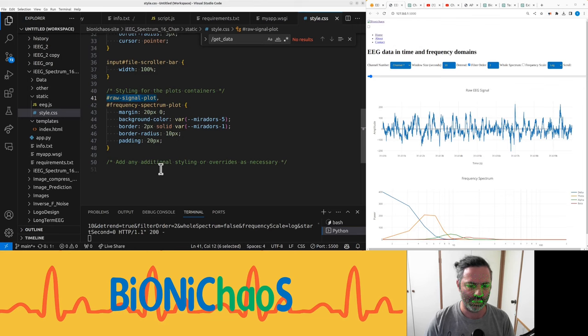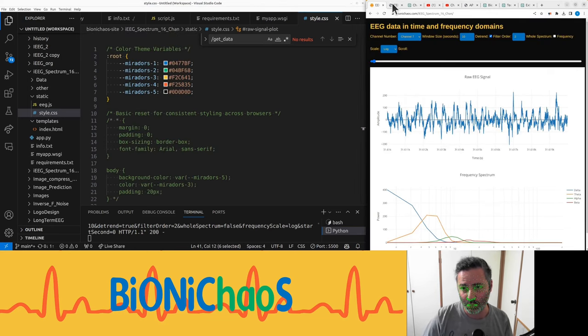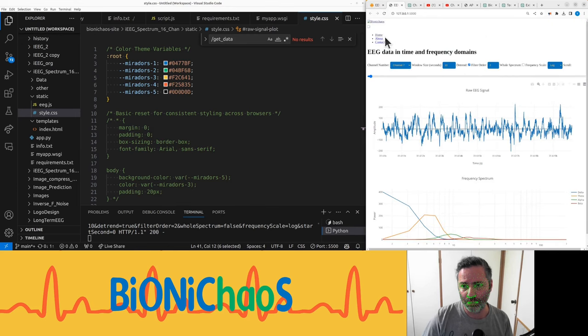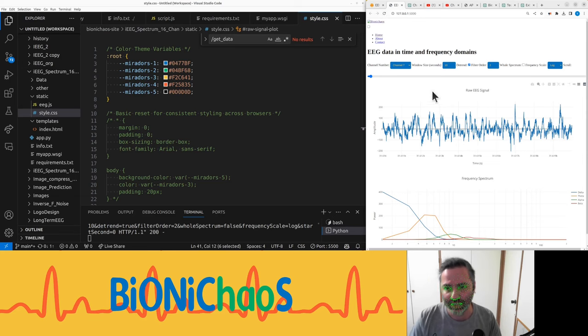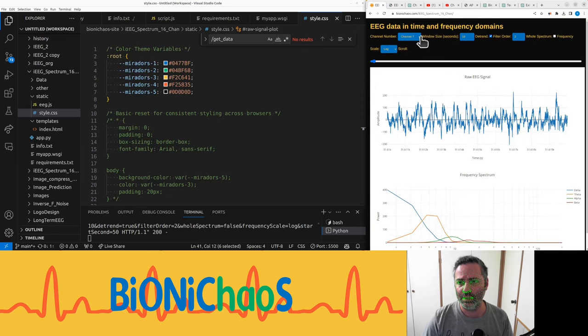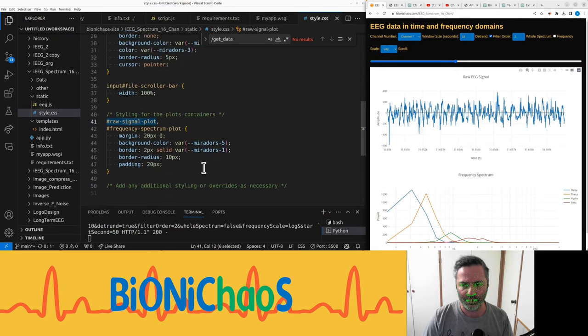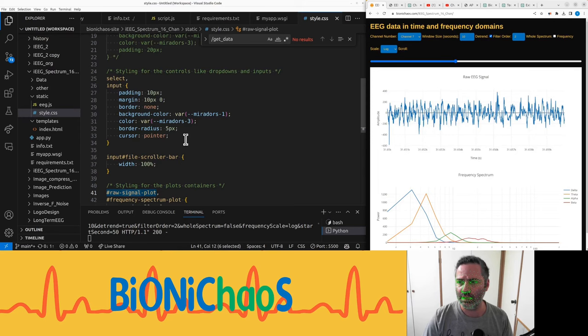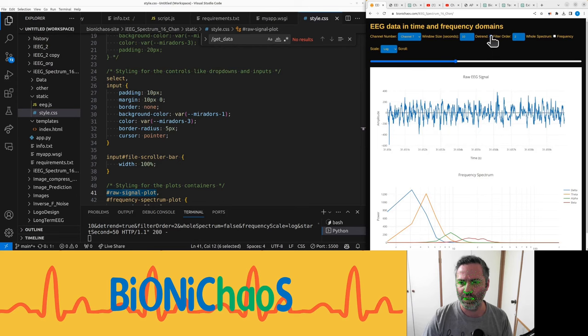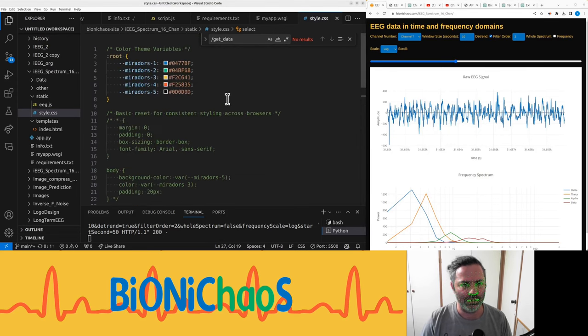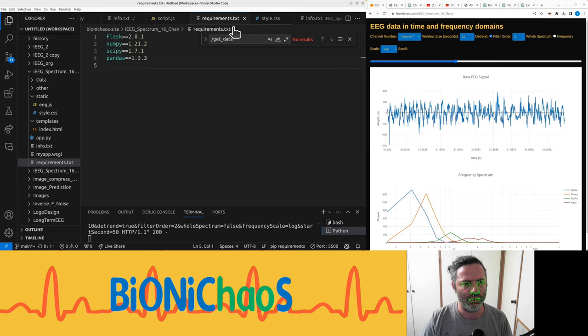Raw signal plot is okay. And I can't really test it on the server before actually deploying into production, which should be fine. The thing still works locally. This is what we currently have in production. Spectrum plot, that's okay. This is just the input buttons. They can remain the same. I mean, those check boxes could have been made bigger, but we will sort that later. We already made quite a few changes. And this can be closed.